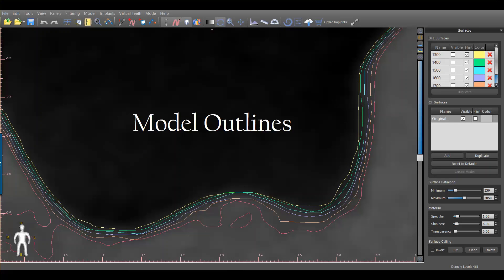Looking at the model outlines all turned on at once: the yellow line, the most internal one at density 1300, means that if you digitally poured this you'd end up with an STL model smaller than what you'd get if you poured it up in stone. That's not helpful — a guide made on that would be too small to fit in the actual mouth. On the other end, the red outline at 1800 would not only have those moth-eaten holes but would also be larger than the actual model. We need the sweet spot — for me that was the blue line at 1500, which follows very closely to where the actual PVS and air line is between the two.